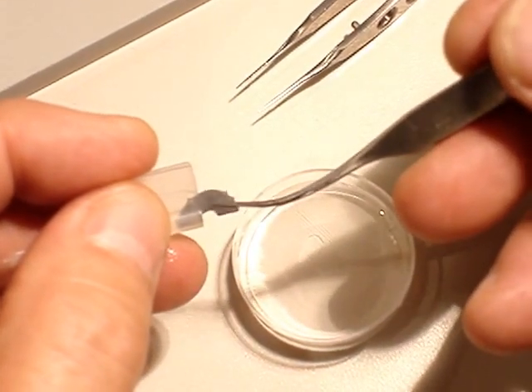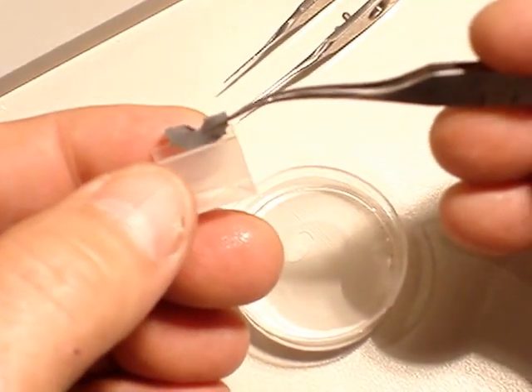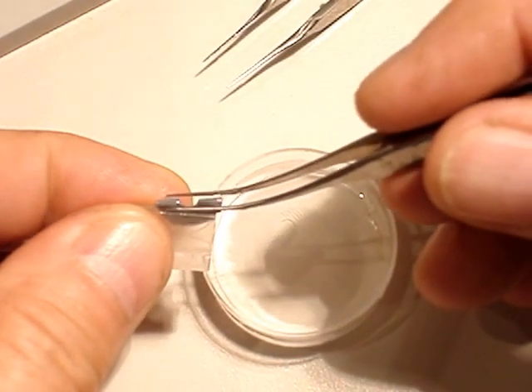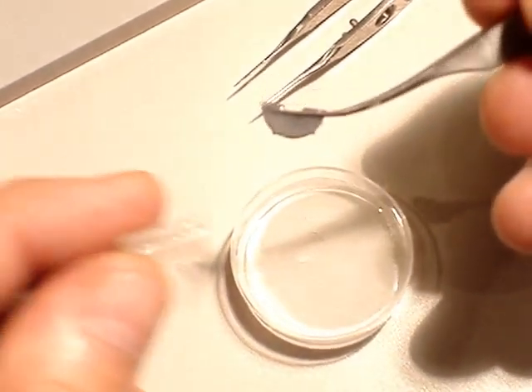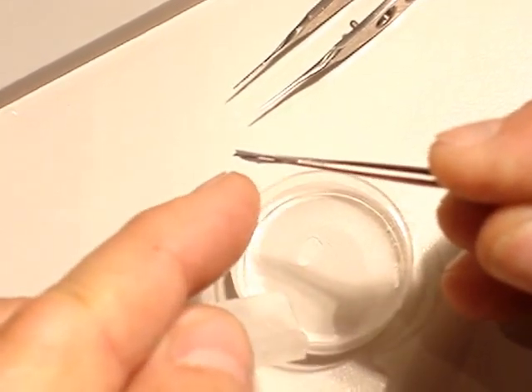Just hold it with some viscoelastic solution. The two parts of the implant glue a little bit. So just come with the forceps. The forceps must be long. Touch the whole lens.